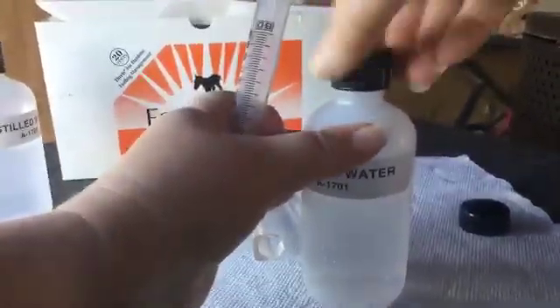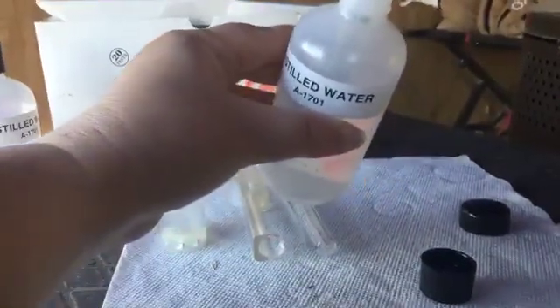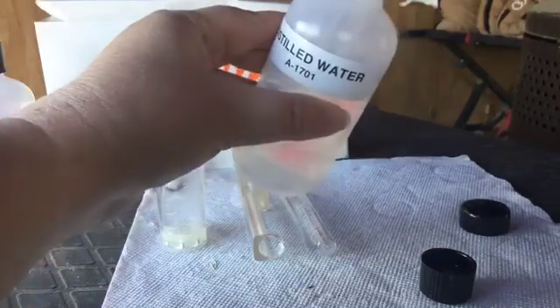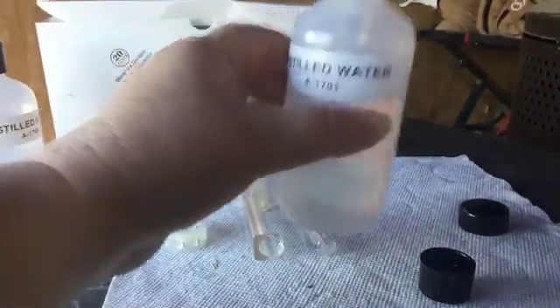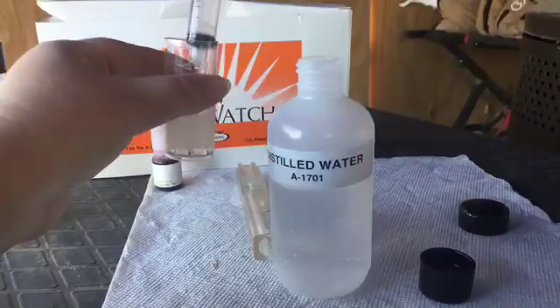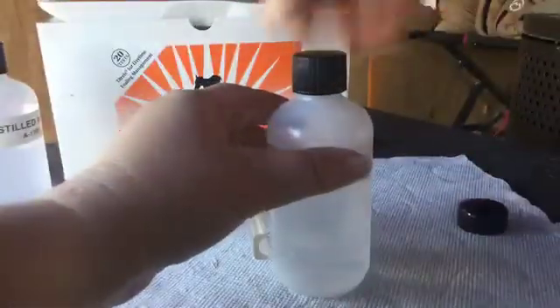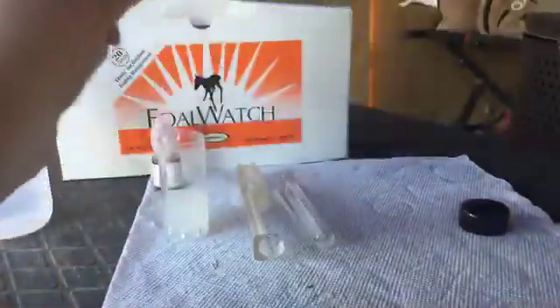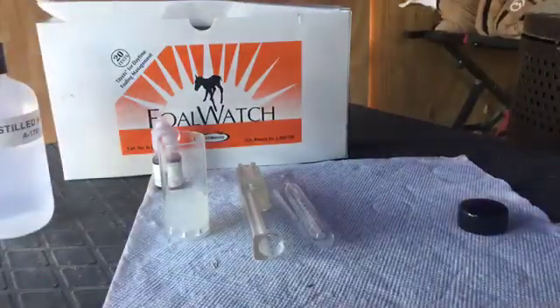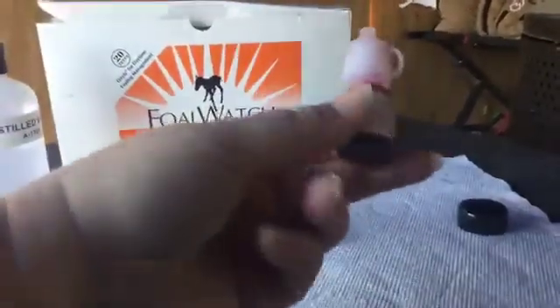We are going to take this syringe that comes with the kit, and the distilled water that they give us, stick this in here, pull up, go back down to 9 milliliters, put it in the container, set this aside. We are done with it. Just for an FYI, I like to get several gallons of distilled water to keep on hand. You can never have enough. I wash everything with it, and if you use a little bottle, you don't have enough.